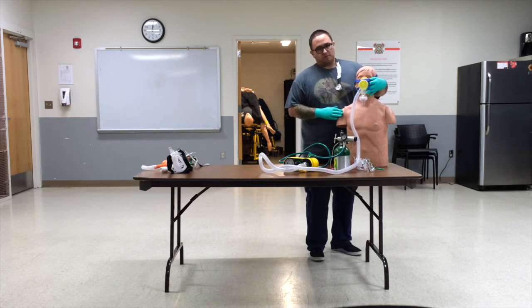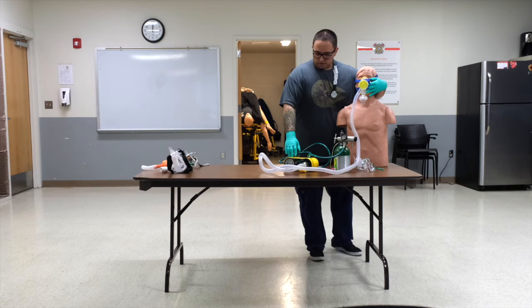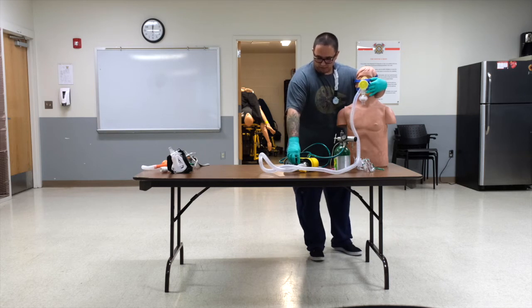These are patients that we want to make sure that we're checking vital signs every 3 to 5 minutes because of the possibility of chest trauma. If we're not getting much improvement with the machine, and after our reassessment, we can start going up on the PEEP in increments.